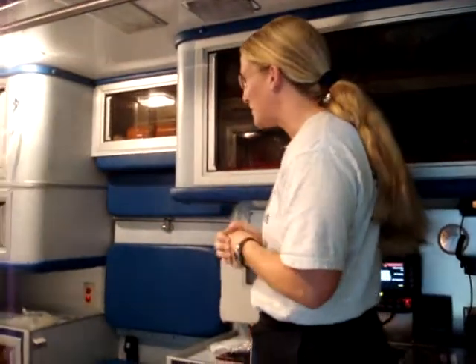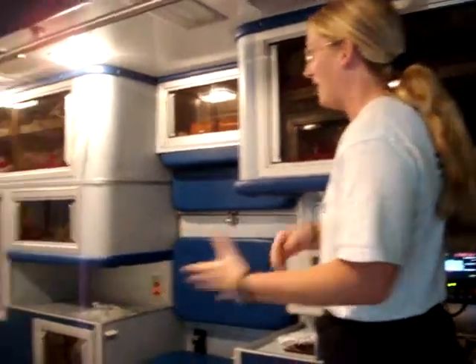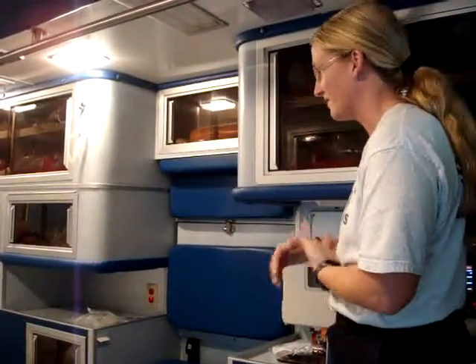I'm going to demonstrate how you set up a truck for your partner when you're on an emergency call and they're with the patient and they say go out to the truck and set the truck up. For most patients, we always want O2, IV, and monitor.